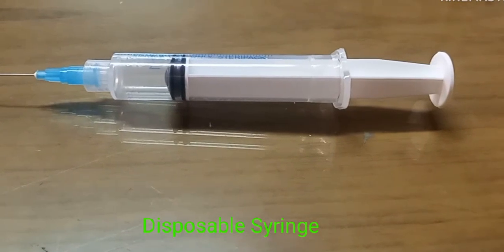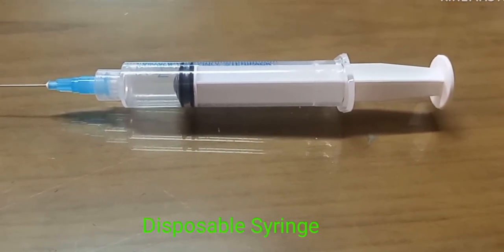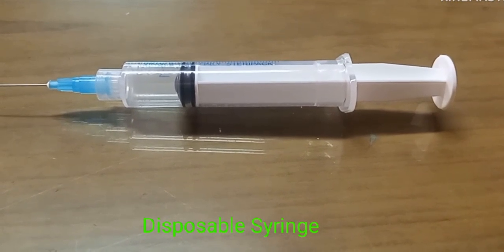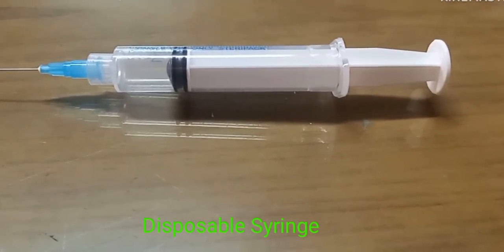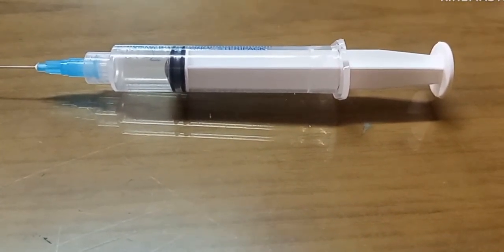It's a disposable syringe. It is used for collection of blood from a blood vessel. It's also used for injecting drugs into muscle or vein.